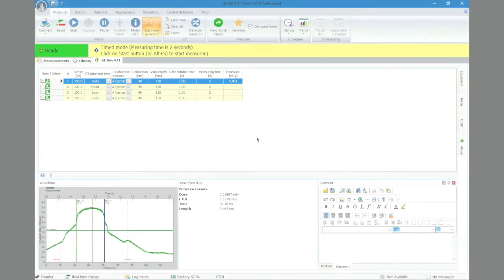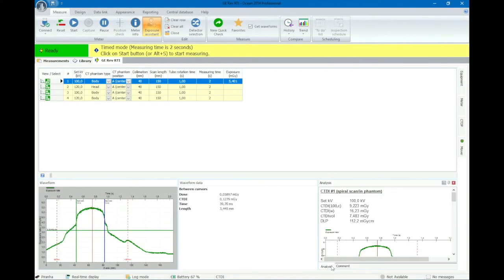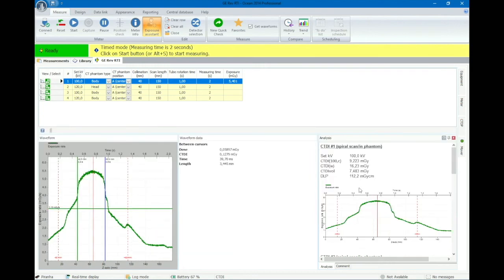The measurement process is now complete. With just one scan Ocean has collected values for CT DI 100, CT DI weighted, CT DI volume and dose length product.